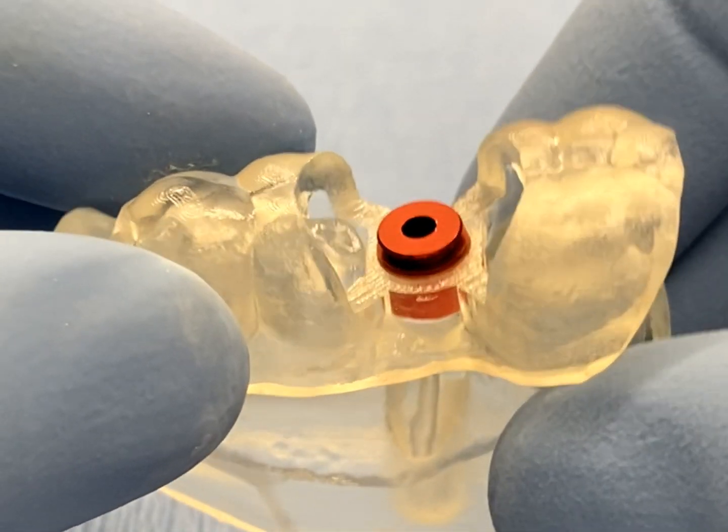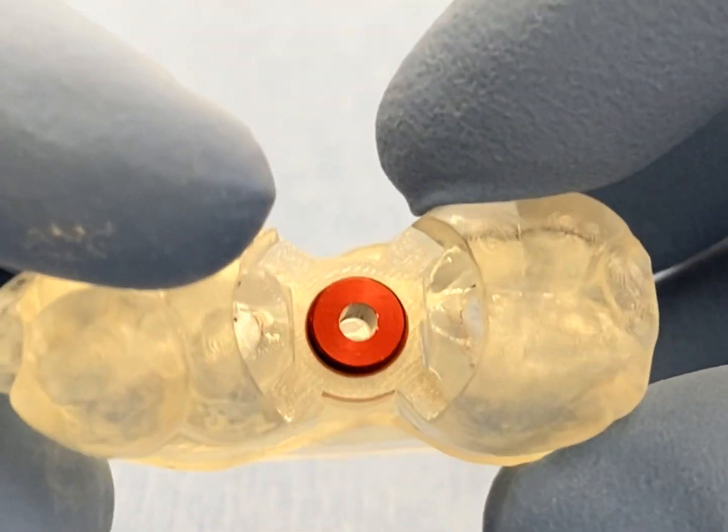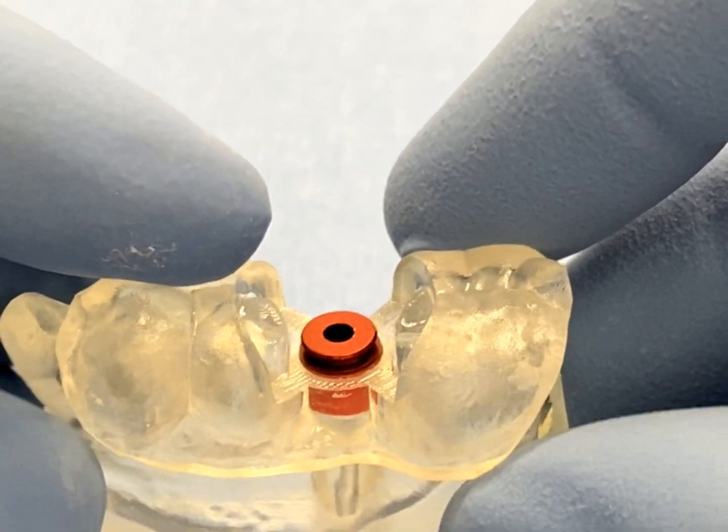Once completed, place the GRS surgical guide back on the model to confirm a stable fit noting an accurate alignment that is free of any interferences.